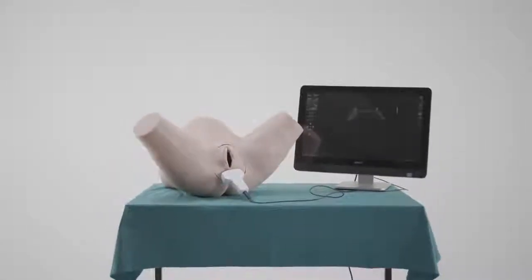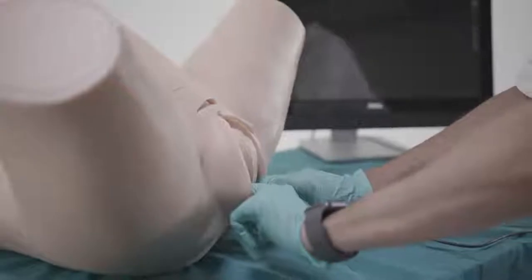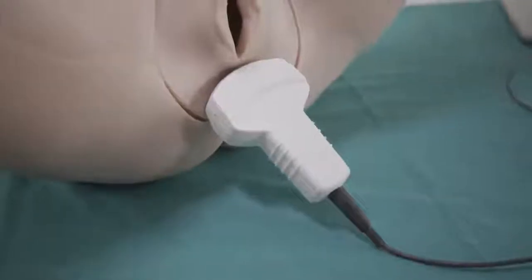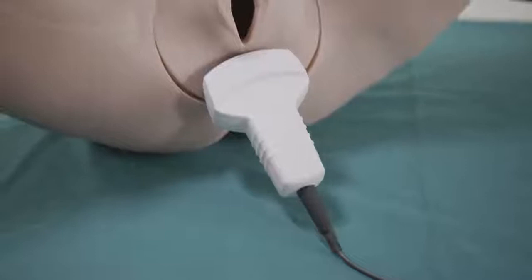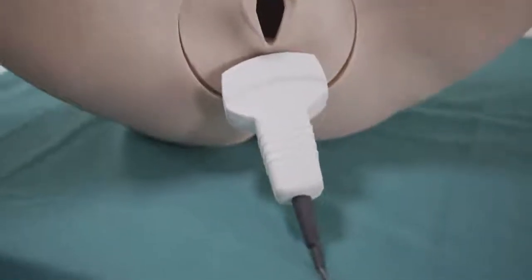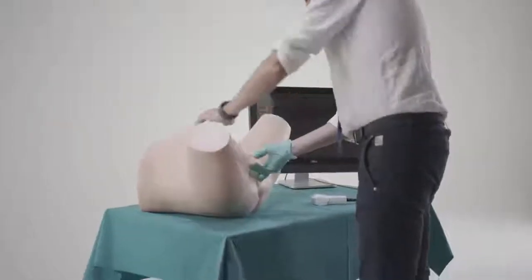UCM includes a childbirth mannequin, one ultrasound curvilinear probe, RFID sensors, and several clinical cases from basic to advanced level.